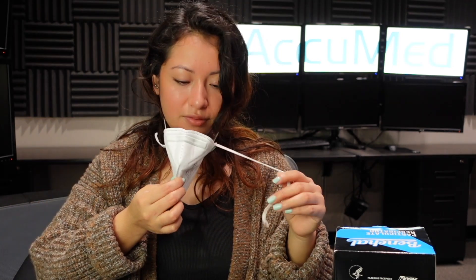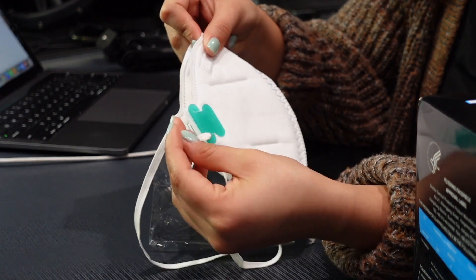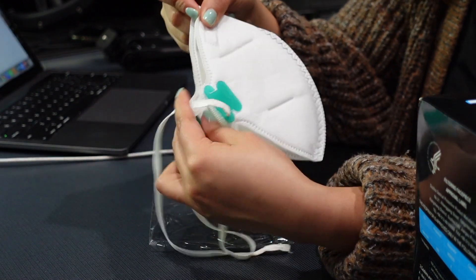I was trying to adjust the straps and it just kind of came off on this side — now I have a loose head strap. It fits pretty well, but then it just came off. It just popped off because of the little loop on the attachment.